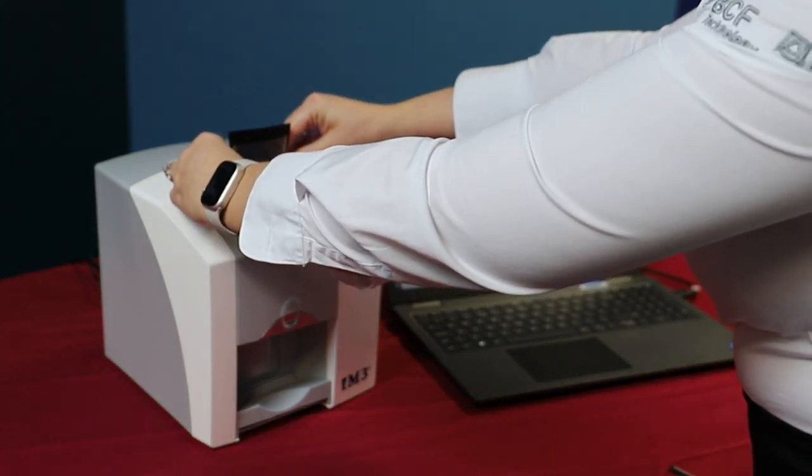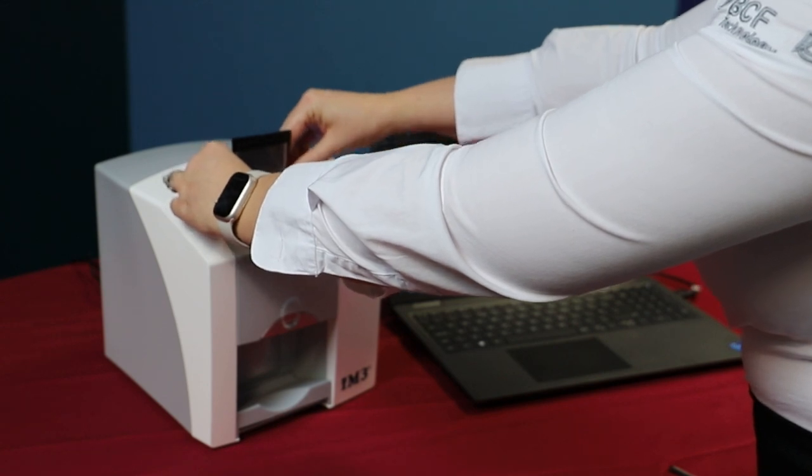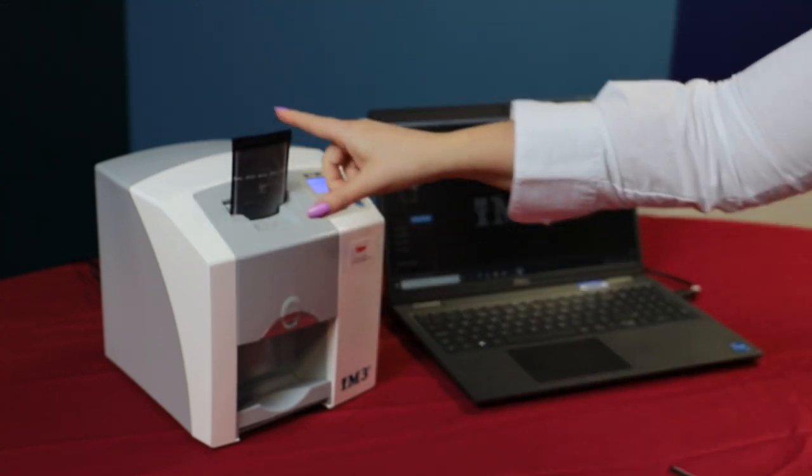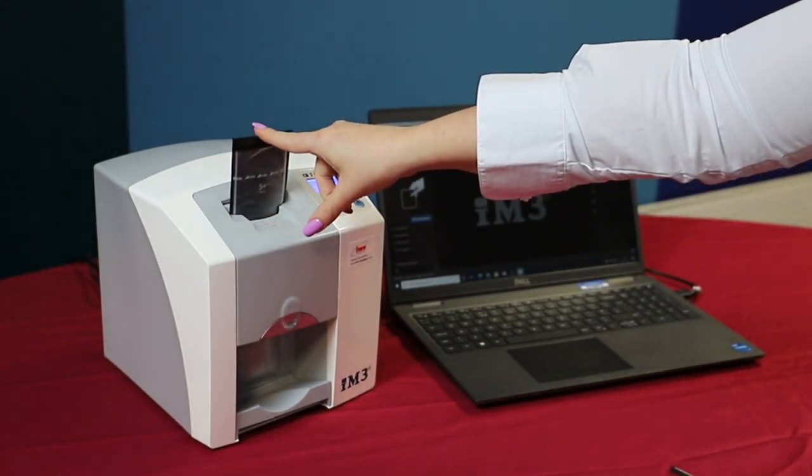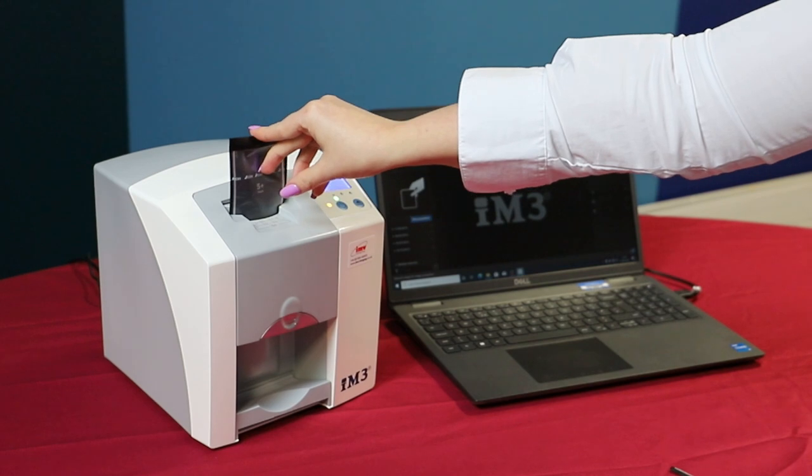Put the plate in towards the drawer and do not angle. Press down until you feel a little bit of resistance.